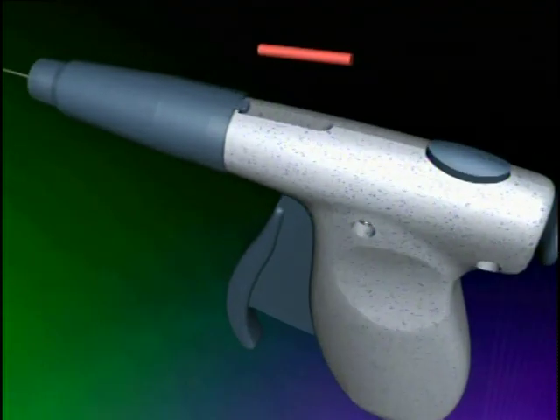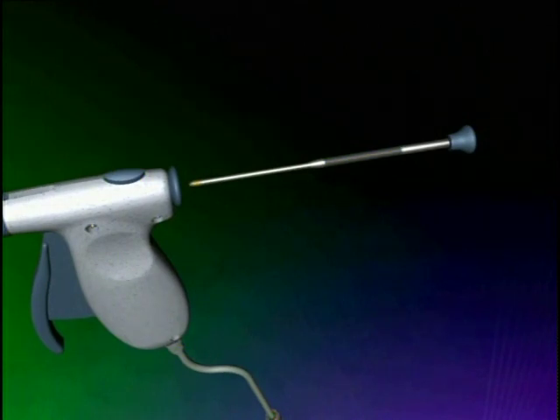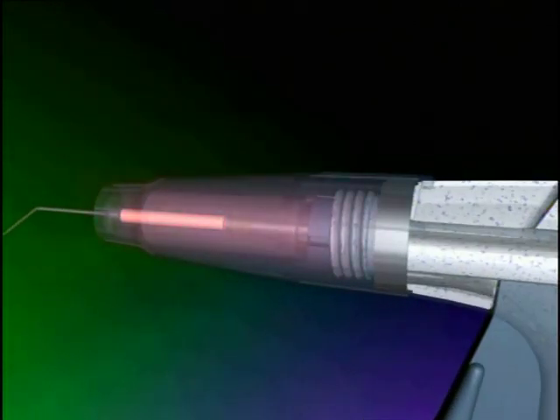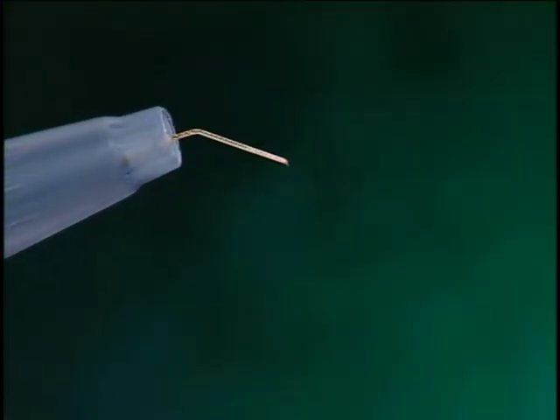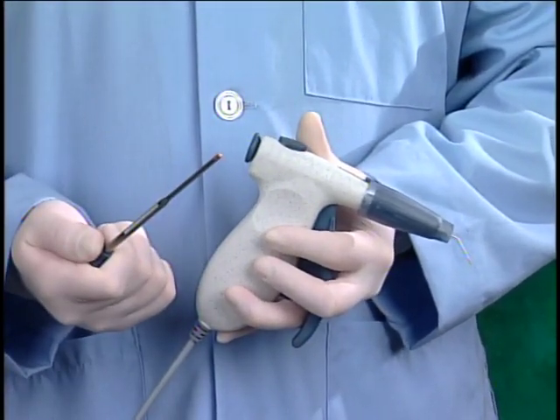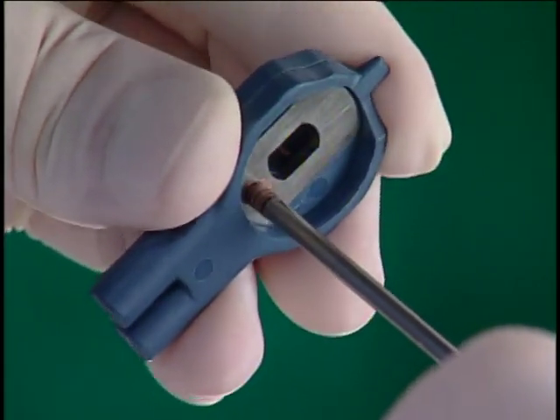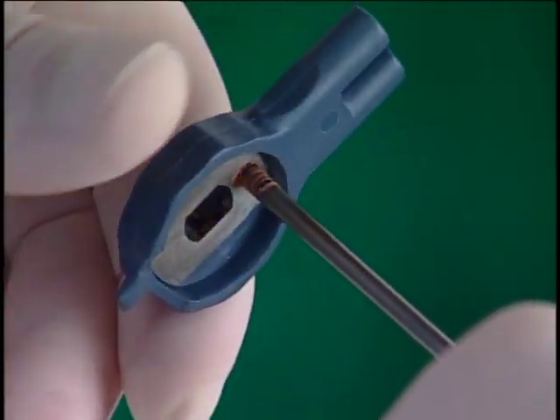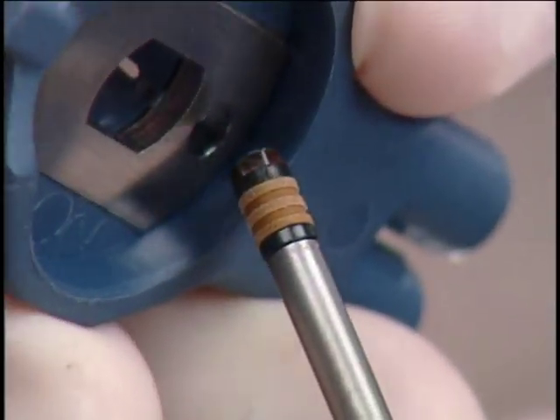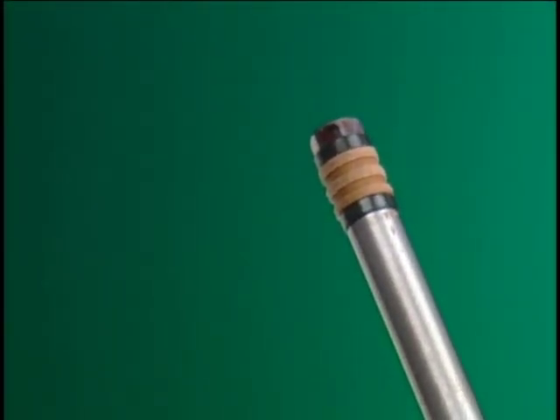A very simple but important detail for operation is to use only one gutta percha pellet at a time. Loading more than one pellet will clog the gun assembly and cause premature failure of the plunger seal. Remember to empty the gun before a new gutta percha pellet is inserted. Occasionally, the seal assembly on the Obtura's plunger shaft will need to be replaced due to wear. When it does come time to change the plunger seal, heat is applied to the thin section of the plunger shaft close to the seal to remove the screw with your multi-tool. When installing the new seal assembly with the multi-tool, be careful not to over-tighten it — a snug fit is all that's required.